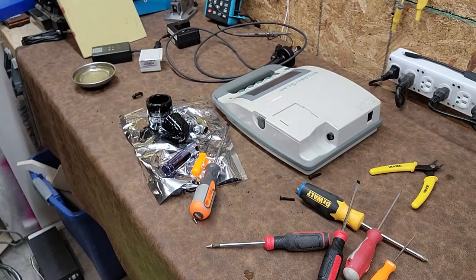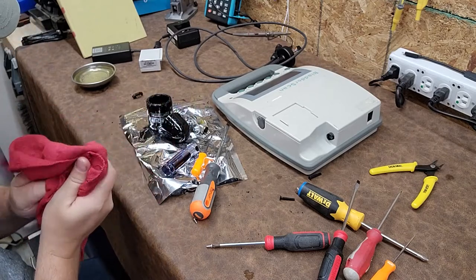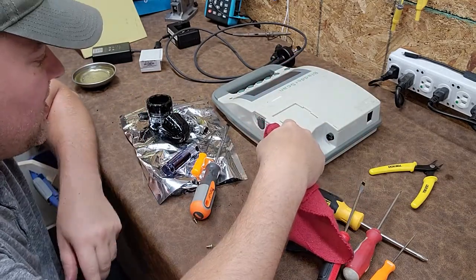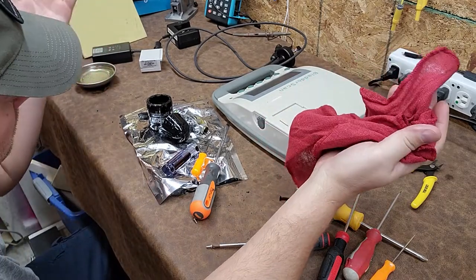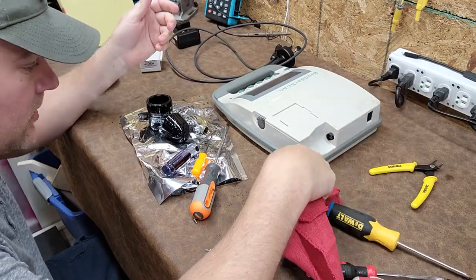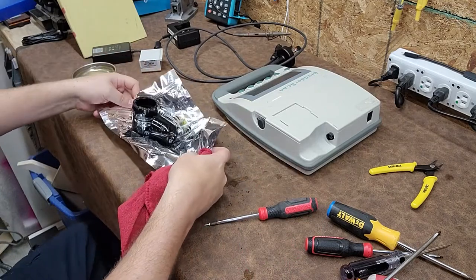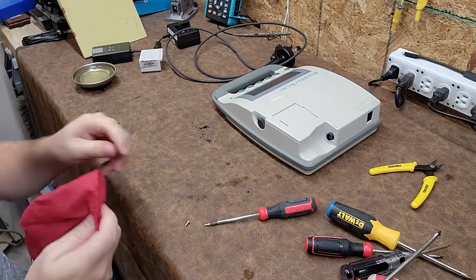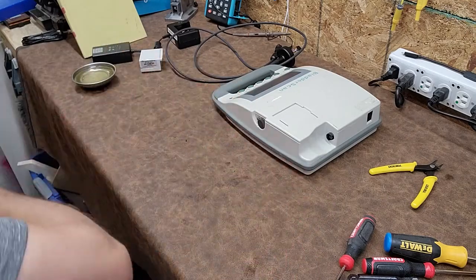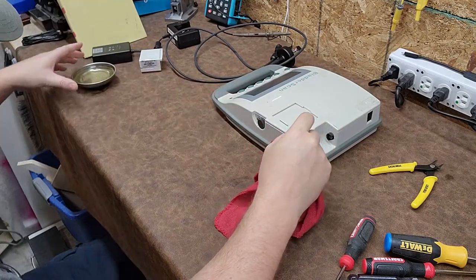Since this guy has two stepper motors and a crystal, that means somewhere it's got an analog-to-digital converter and two stepper drivers. I already know there are going to be two separate drivers in here and probably an ADC. I might actually donate some of this stuff to a college in its current state — taken apart — so that people can see the insides of medical technology and what really makes them work. A lot of the stuff on this channel I end up donating to local biomed colleges.